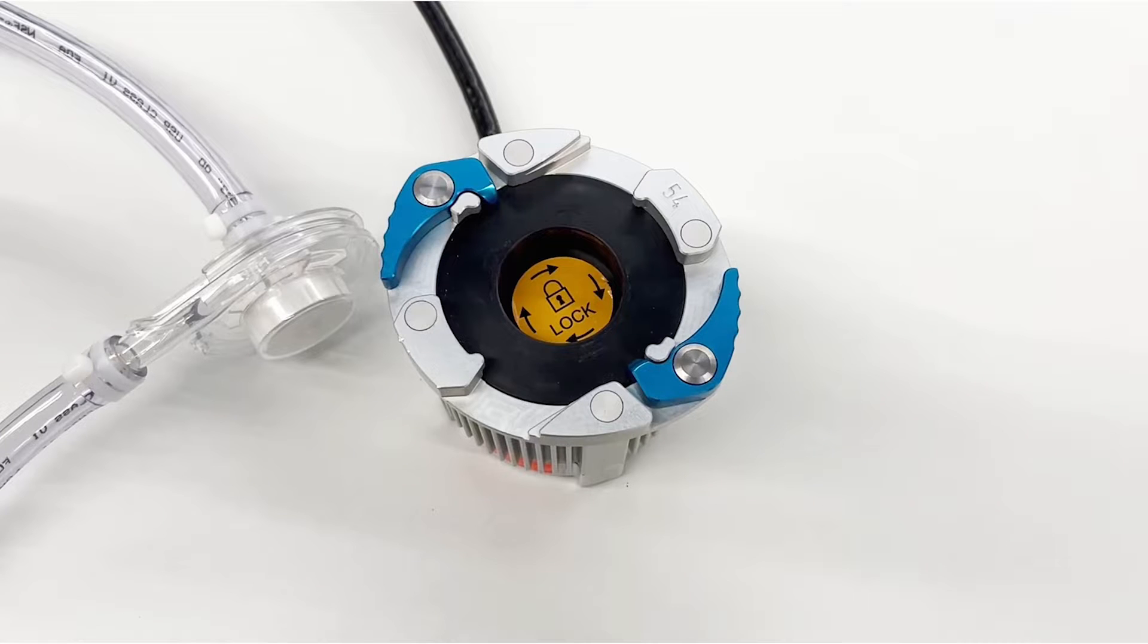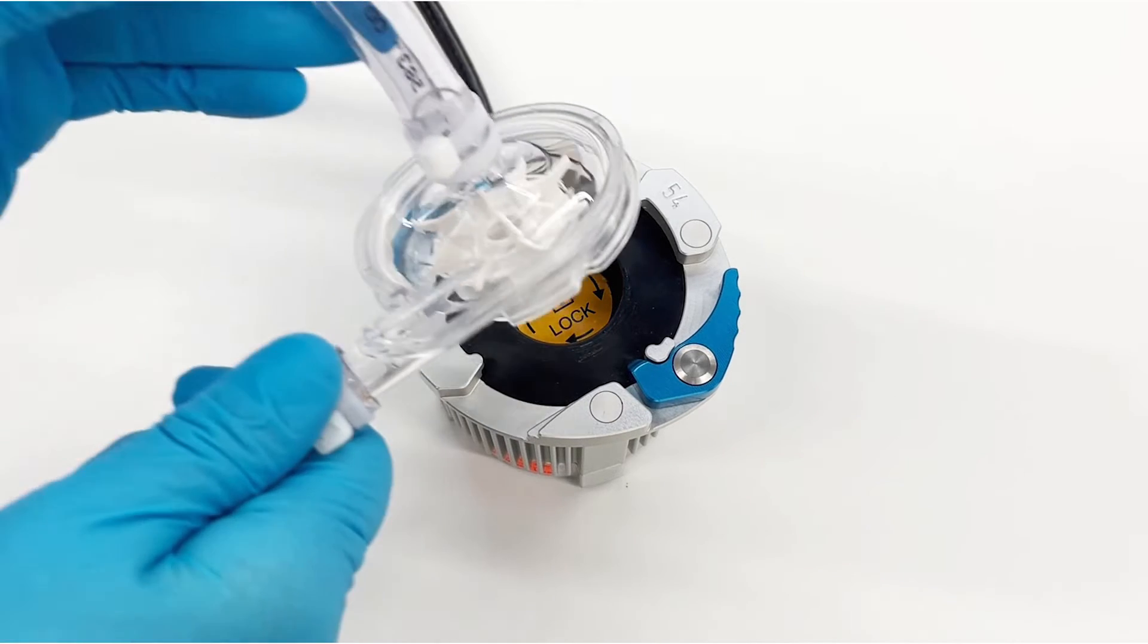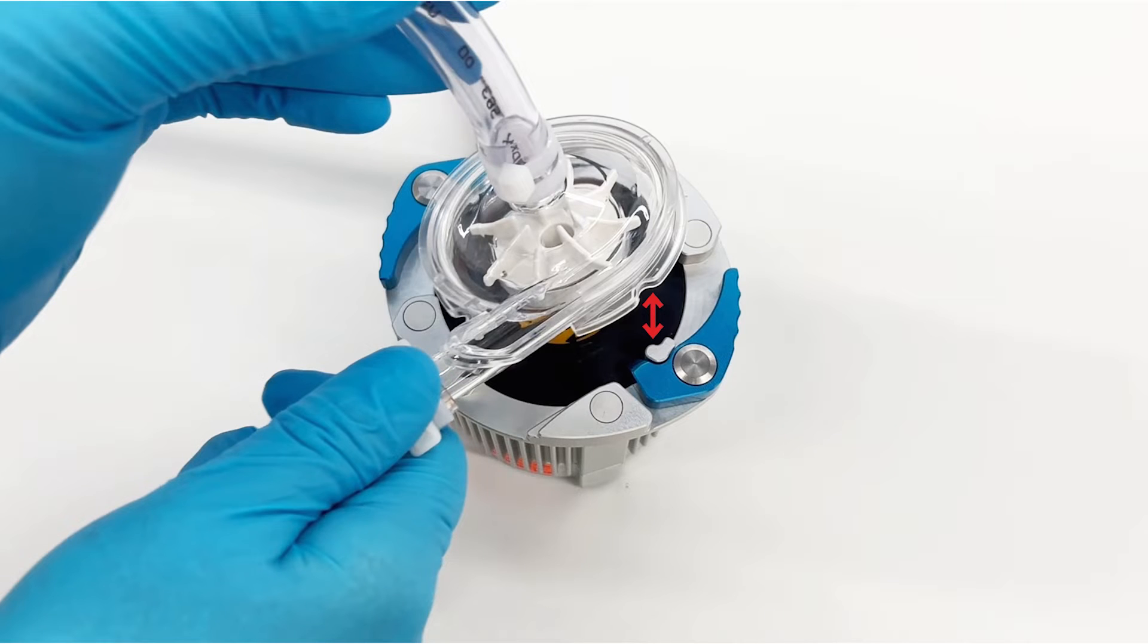The CentraMag motor is compatible with both the CentraMag and PediMag blood pumps. To insert the blood pump, match the grooves on the pump with the corresponding notches on the motor and ensure it sits firmly into the motor cup.